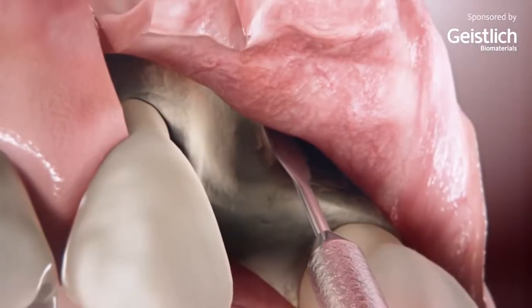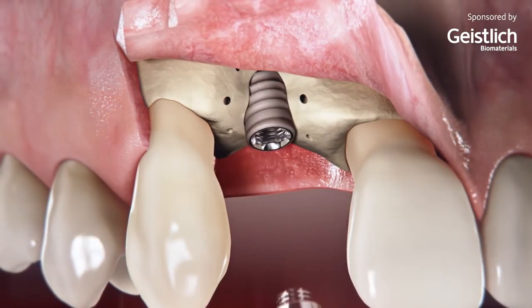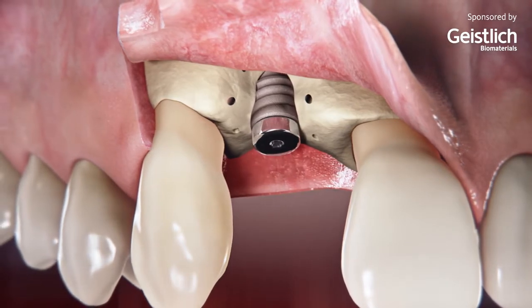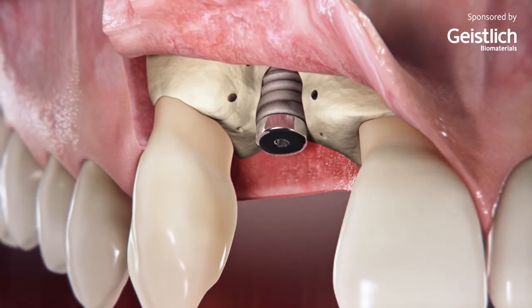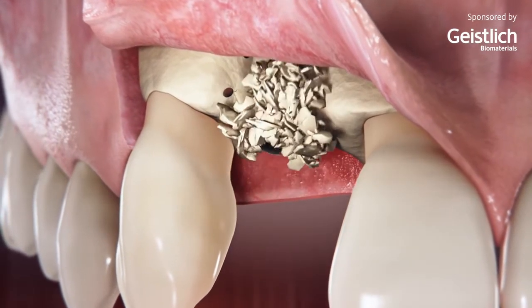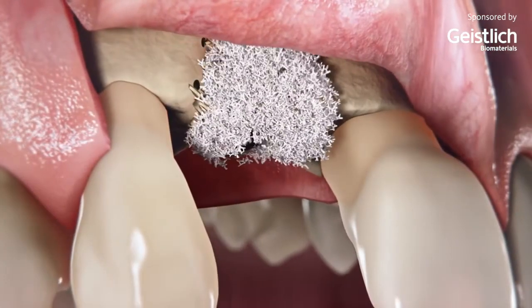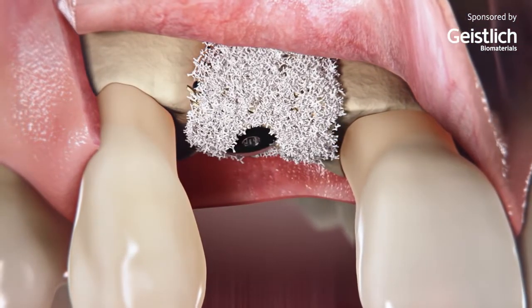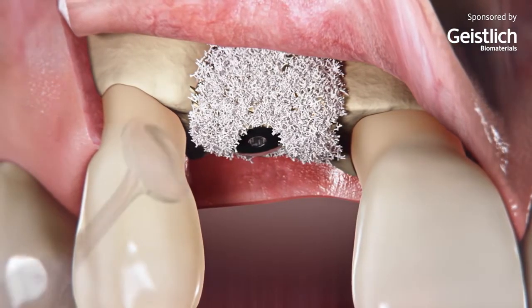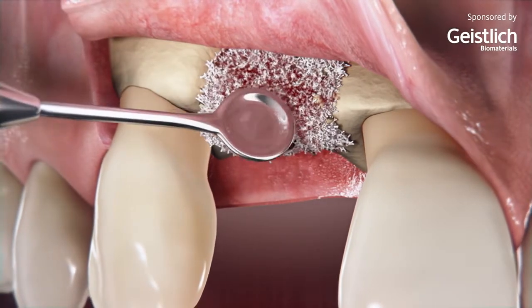The insertion of an implant requires bone regeneration. New bone formation originates from the lateral bone walls of this crater-like two-wall defect. It is supported by the applied layer of autogenous bone chips locally harvested with a bone scraper. The second layer of deproteinized bovine bone mineral particles helps to over-contour the ridge and provide long-term stability, achieved by the low substitution rate of the xenogeneic bone substitute.